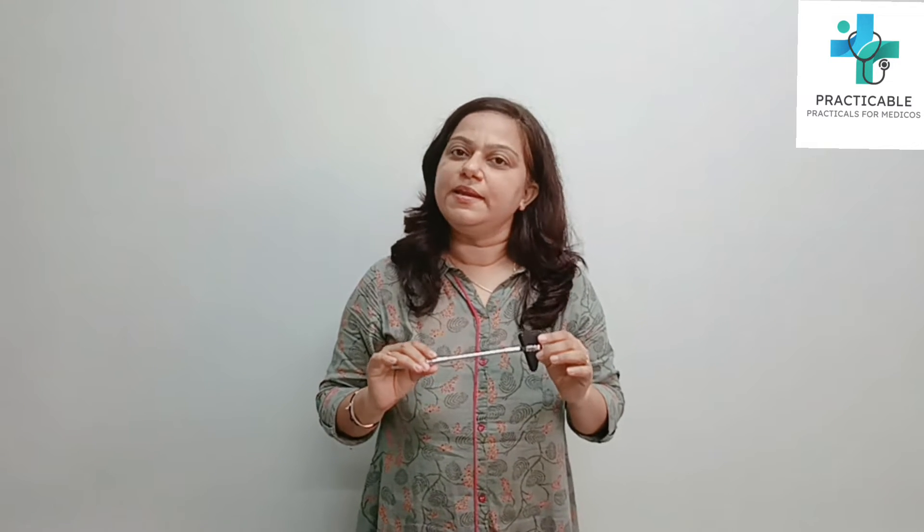Hello everyone, today I am going to discuss an instrument called the clinical hammer, or percussion hammer. Now let us understand the instrument in detail.